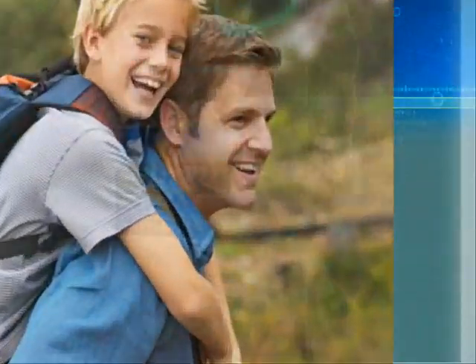Aspironics dry powder inhaler is easy to store, easy to carry and easy to use. As easy as taking a breath.